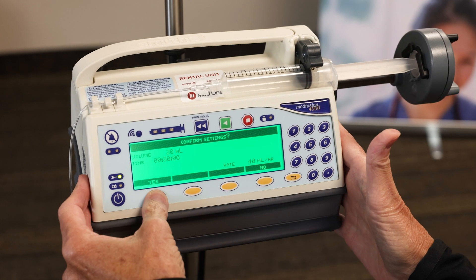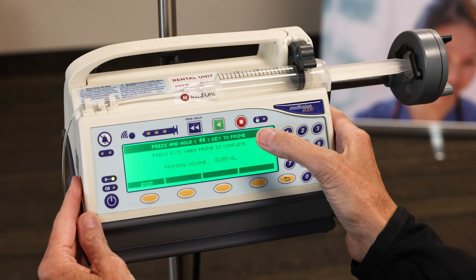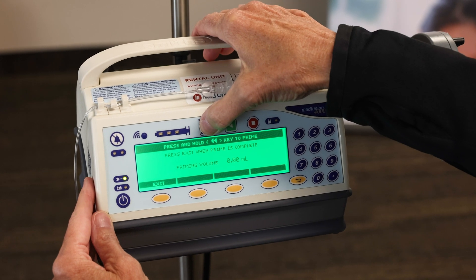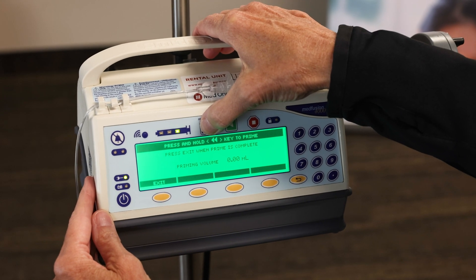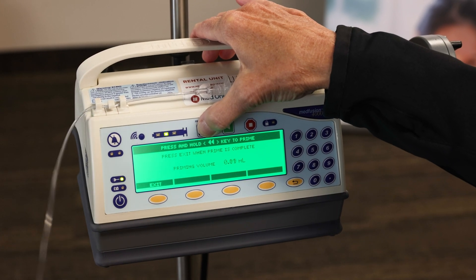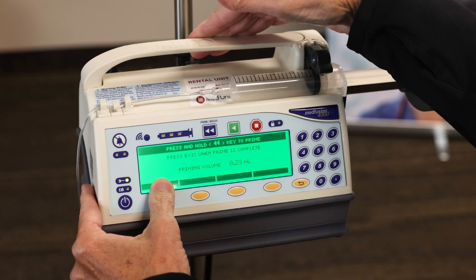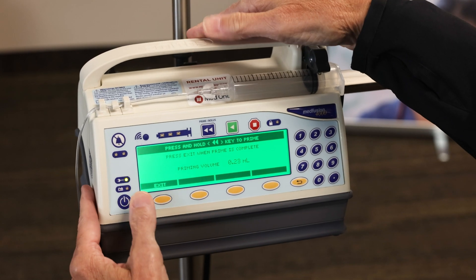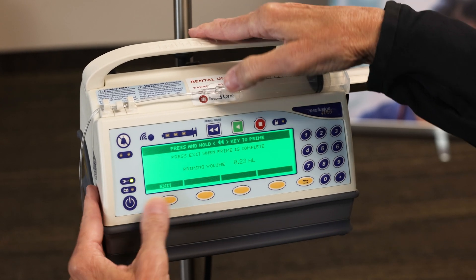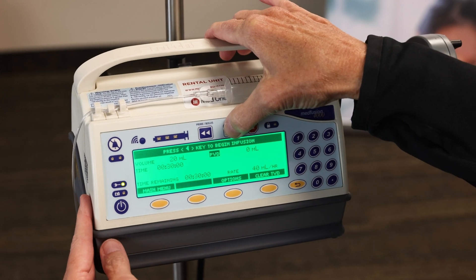Confirm my settings, then I'm going to pull my prime button down until I see drops at the end of my tubing. Then I'm going to exit, exit, and press the green button to start.